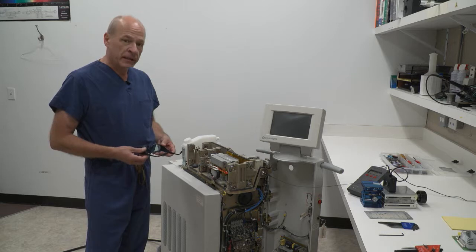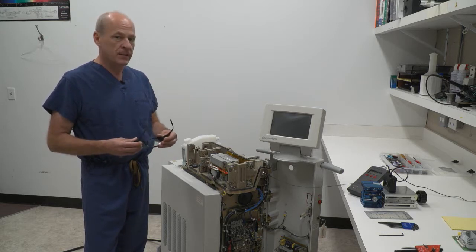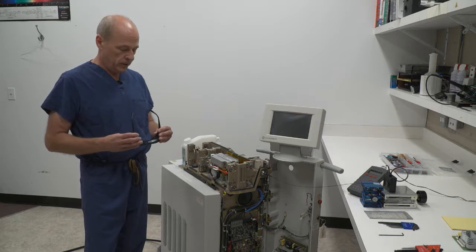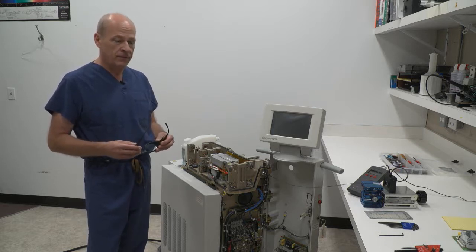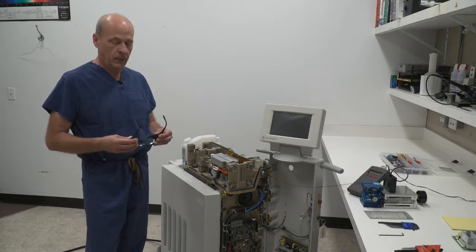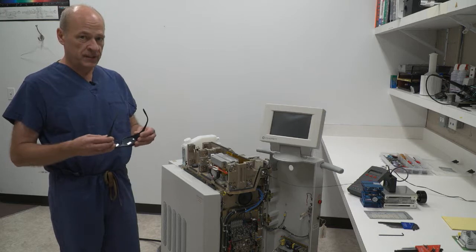I'm about to start the laser up. When I do this I want to have on proper safety glasses. There's a lot of energy coming out of this. Damage will happen to your eye if you are unsafe and not wearing glasses. So anytime you want to start this laser up make sure you have good safety glasses on.